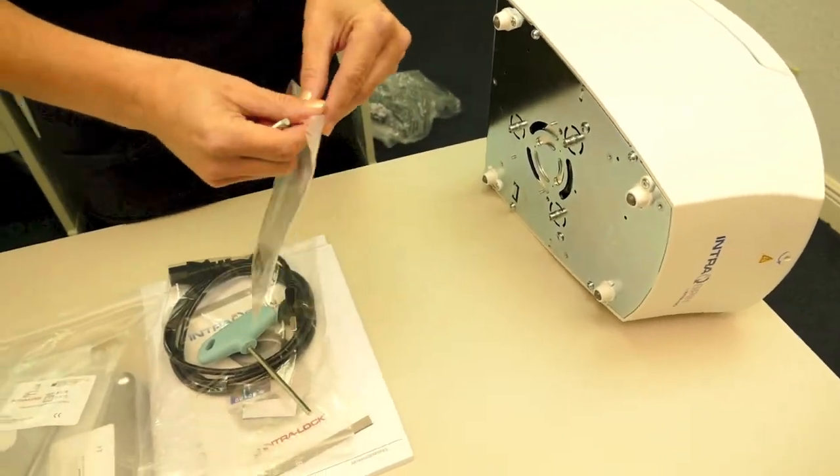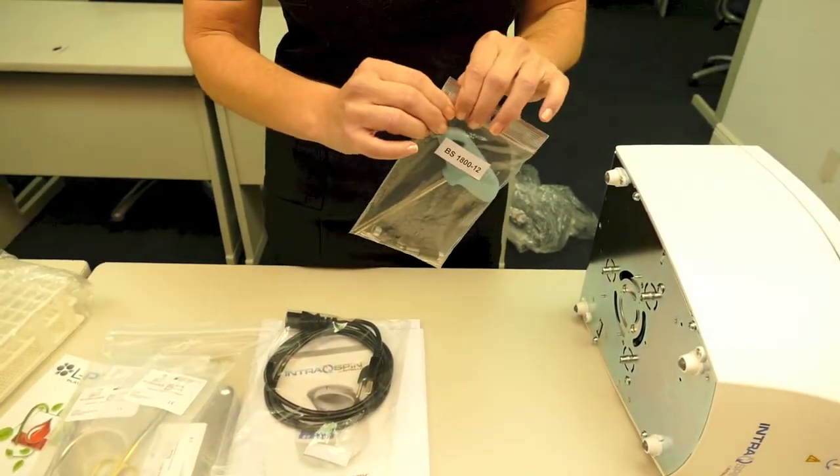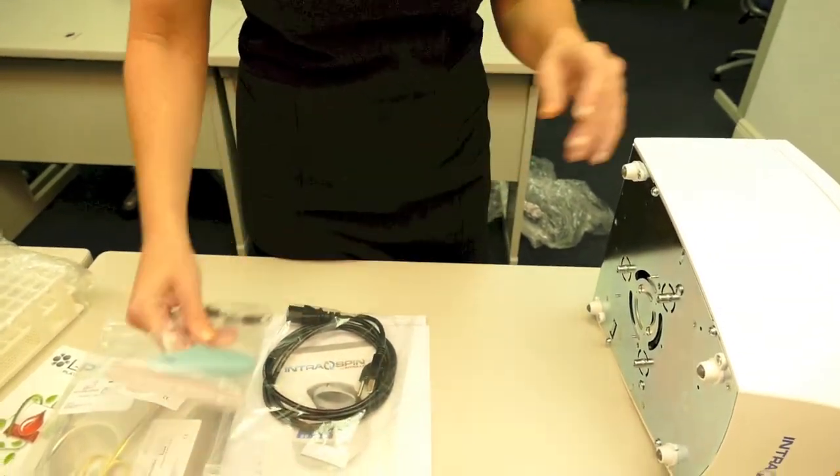You'll place the bolts back into the baggie with the hand wrench. I always suggest placing this with some tape onto the back of your machine or very close so it's always there.